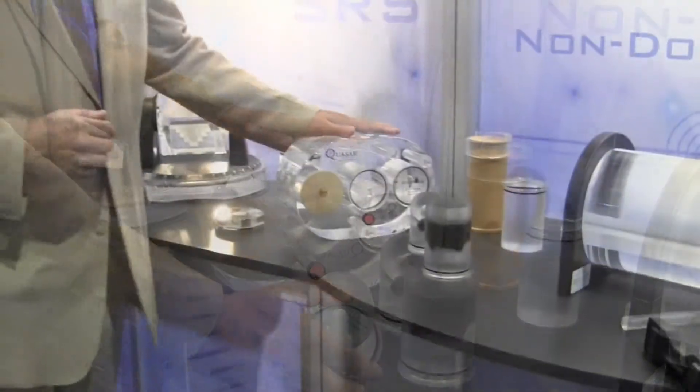It's very cost-effective. Thanks very much for viewing these videos. You can see that we have quite an array of QA devices for radiotherapy and for imaging. Thanks again.